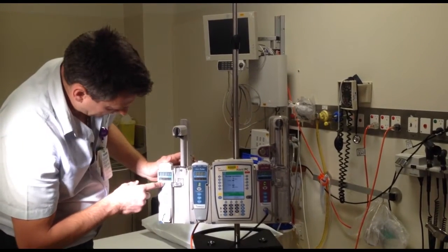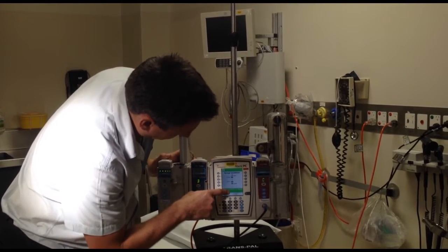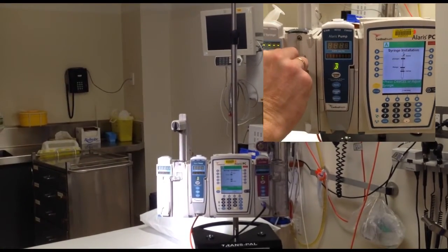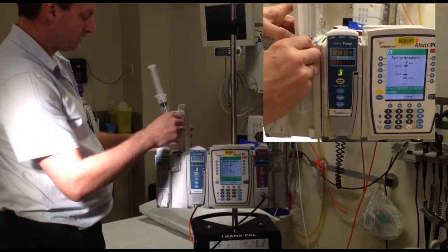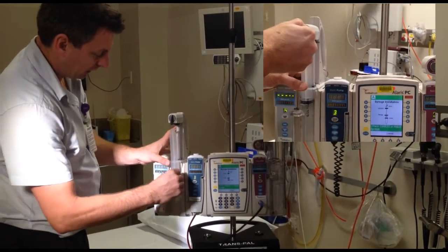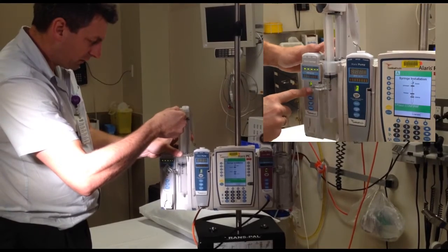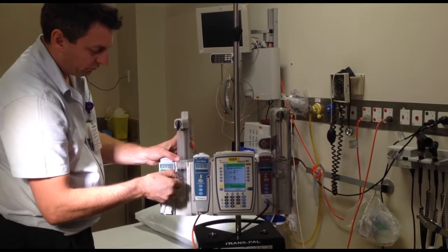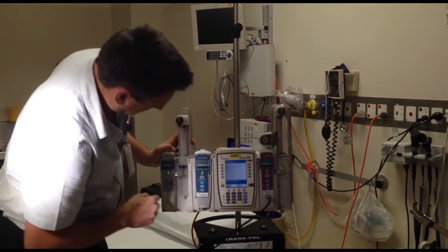So if I did the syringe driver, I'd press channel select first — that will flash — then it will say install the syringe. So I'll grab myself a syringe. Here we use BD plastic 60ml syringes. Lift up my rabbit ears as high as I can, load the syringe under the flange, turn my rabbit ears down. Don't push too hard because you'll push the plunger in. Then put my front guide on and it will tell me everything is good to go.